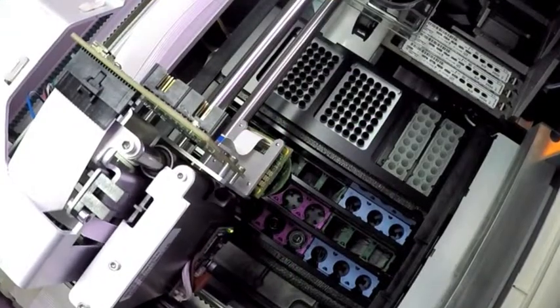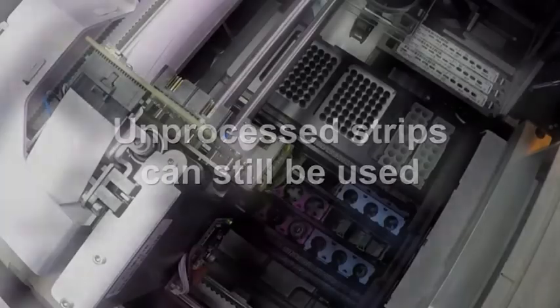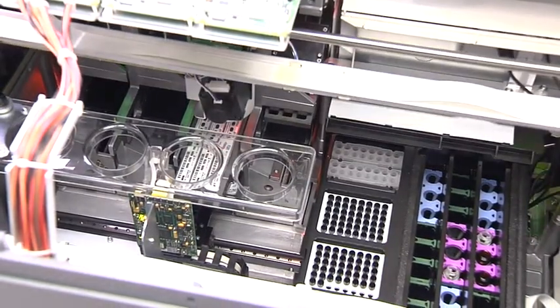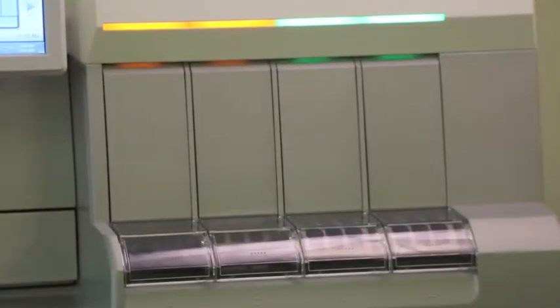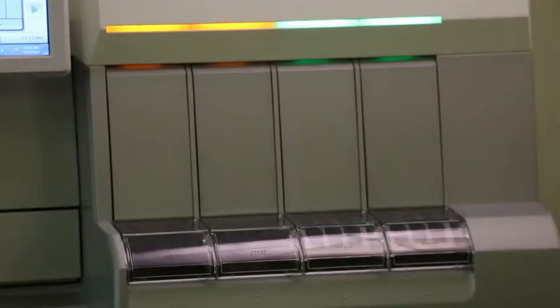If the resistance safety threshold is reached and the sample is rejected at this point, the strip is not considered processed and can still be used. Remember, no tests are run using compromised samples. The VIDAS 3 moves the sample from the patient tube to the strip without passing over other samples, consumables, or test strips. Once the sample has been added, the used pipetter tip is automatically disposed in the waste drawer. The VIDAS 3 automatically starts the test run once all the samples have been added into the strips.